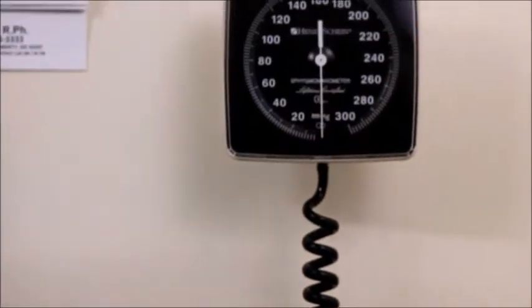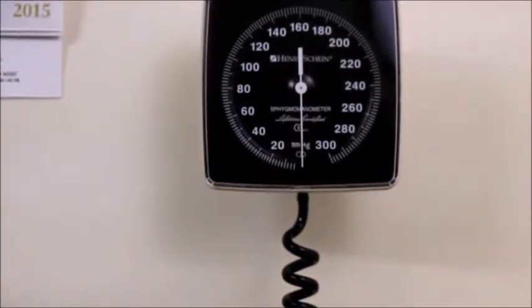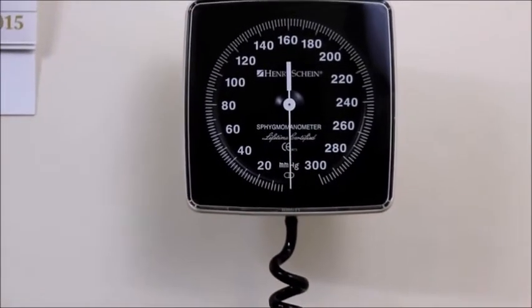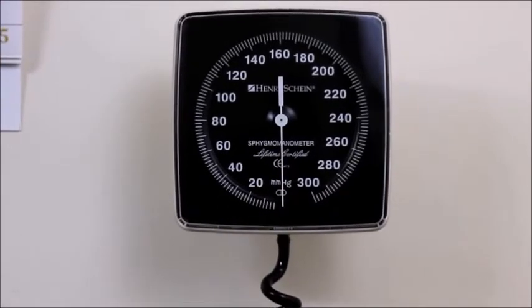Each part of the sphygmomanometer should be examined on a regular basis to be sure that it is functioning correctly. The needle on an aneroid manometer should rest at zero before and after each blood pressure measurement.